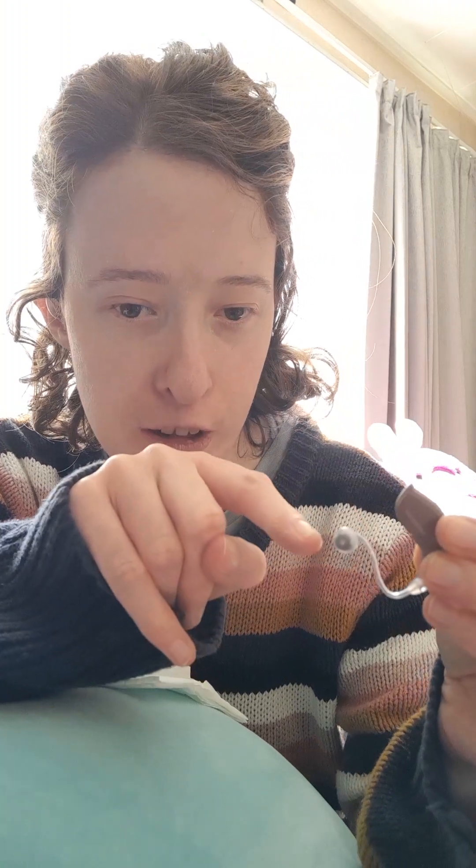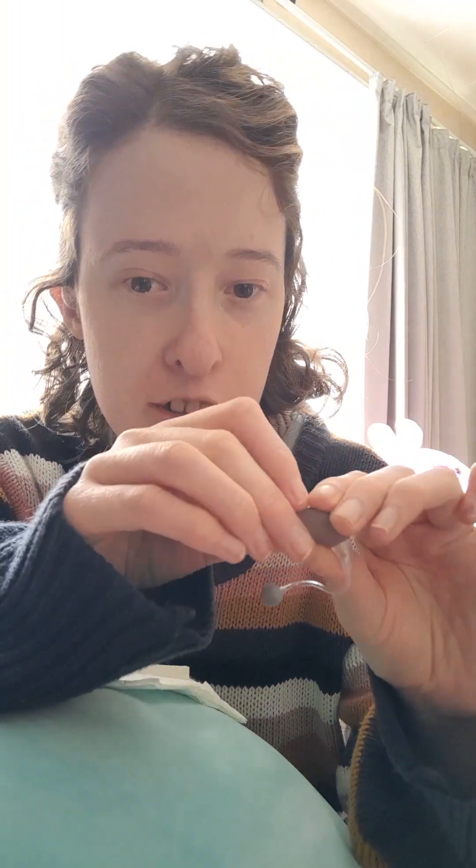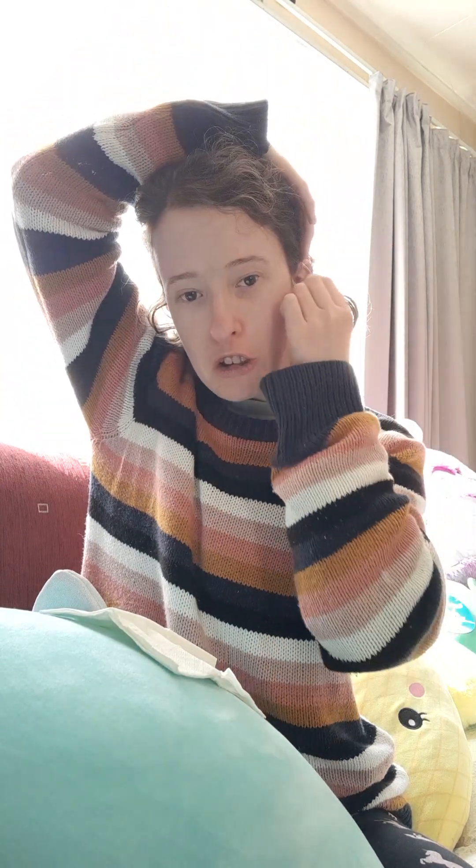This is the left ear, I should say. And this is where the cord is going into. It actually goes in. I think I got the hearing aid in — might need to change that one. Part two — it tells me when it needs to change.